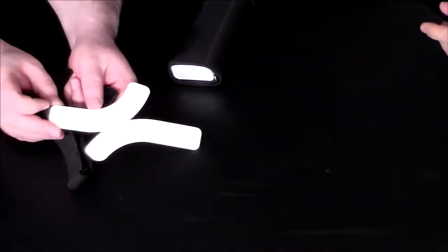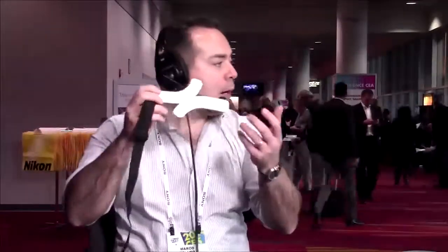The way the system works is the data are wirelessly sent from the QardioArm or from the QardioCore to my smartphone. And then from there, they are sent to our cloud. We'll make it available to whoever you want — it may be a close friend, I can track my father's blood pressure and see if he's measuring regularly and what the values are. Doctors get access to all this information as well, to provide a more comprehensive picture so doctors can do their job better and more efficiently.